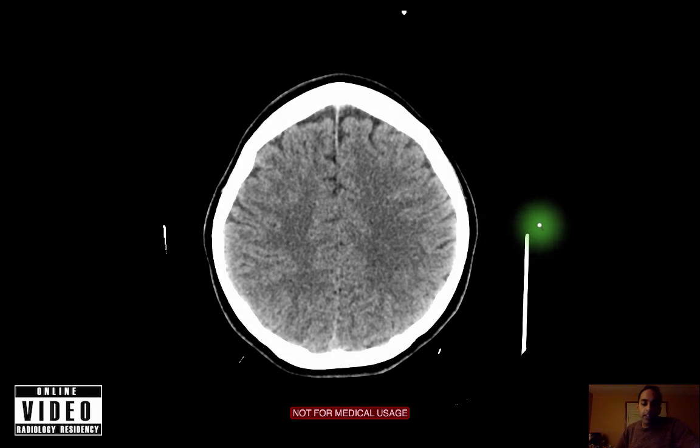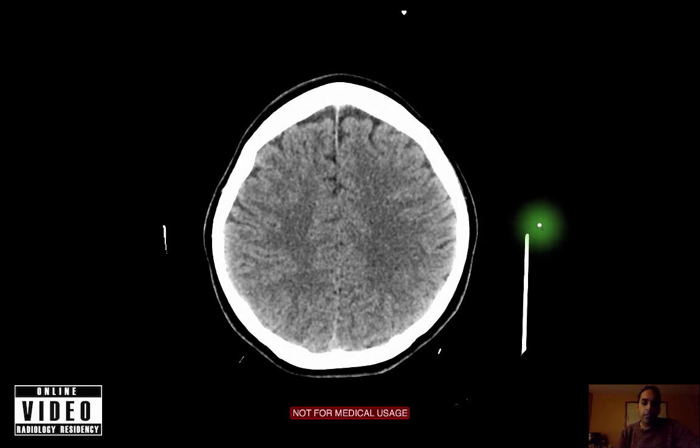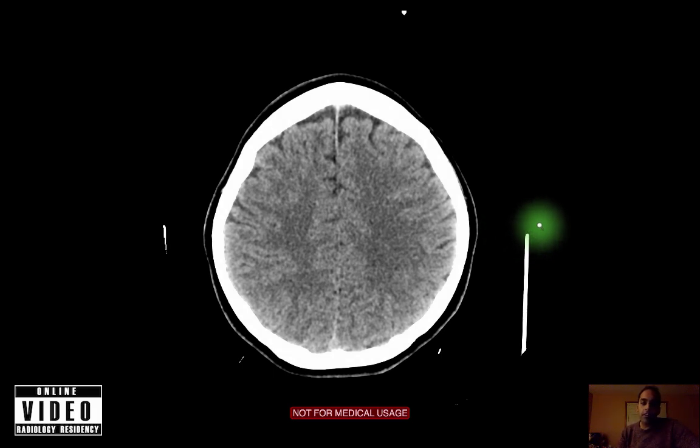Welcome to the session on how to read a head CT. This first session is going to deal with how to exclude hemorrhage in the brain.